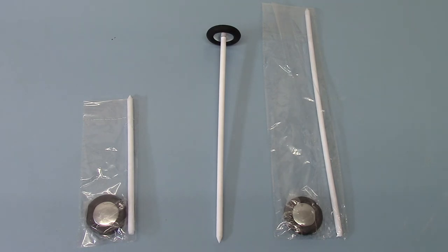So a little caution with that. We usually recommend the standard 32 centimeter handle head for most purchases. They're all available as options on the ValueMed website currently.